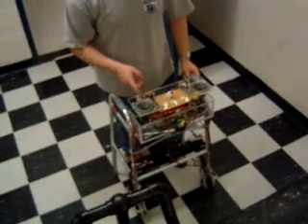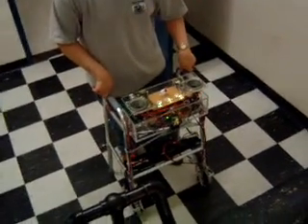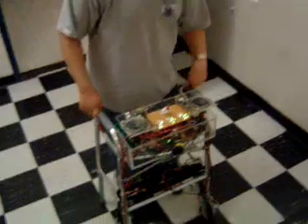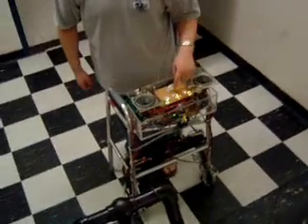Turn on the smart walker by pressing the power button, and notice that immediately the front infrared begins scanning for obstacles in its path. The infrared sensor will detect up to an 18-inch radius. Therefore, if I block it, notice that the 'object ahead' and 'object left' LED matrices lit up.